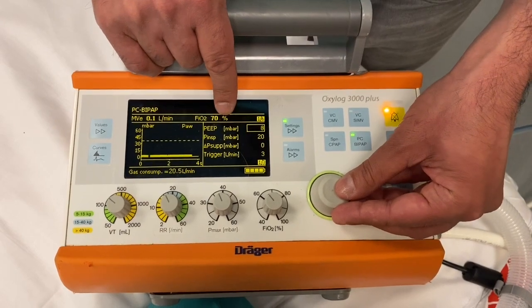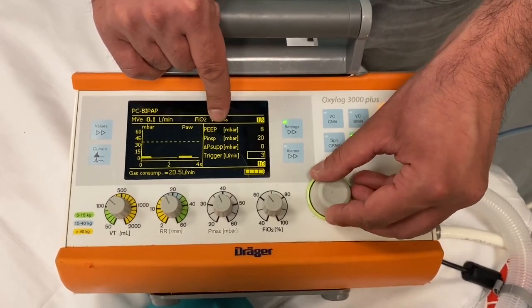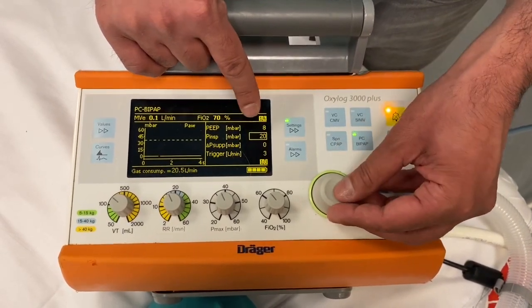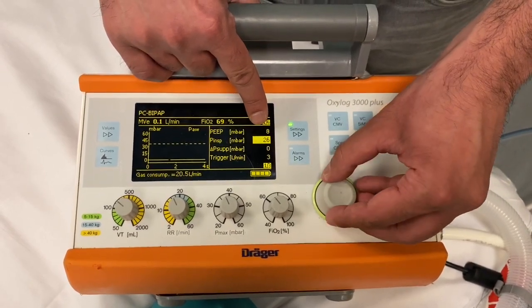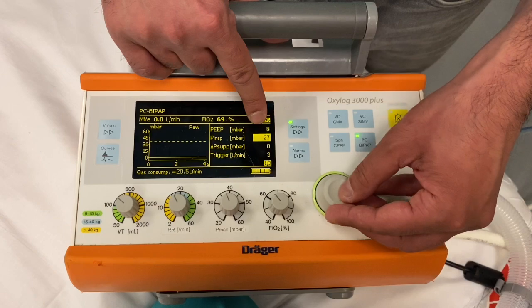If we are still not achieving tidal volumes, you can change the peak inspiratory pressure by clicking and increasing that to achieve your tidal volumes.